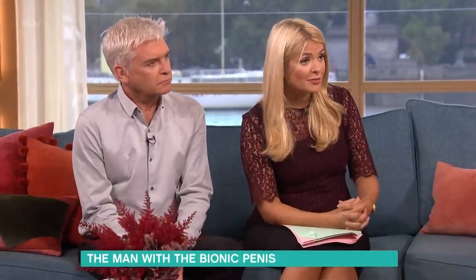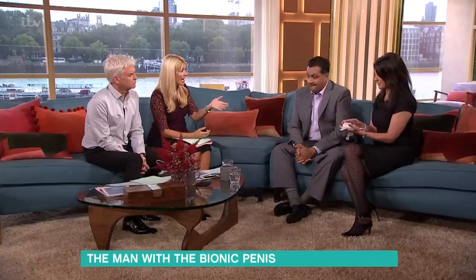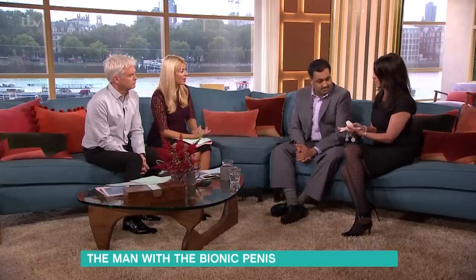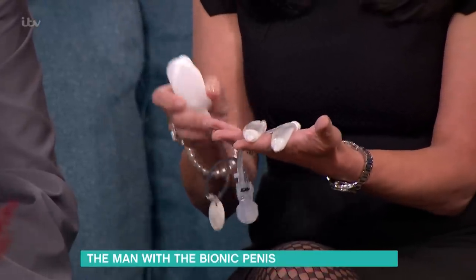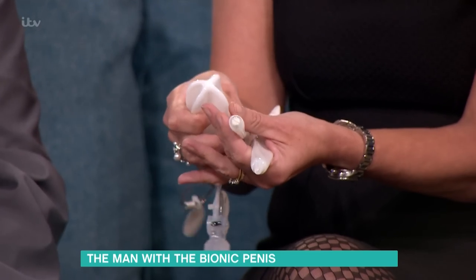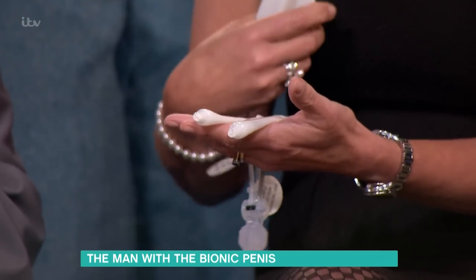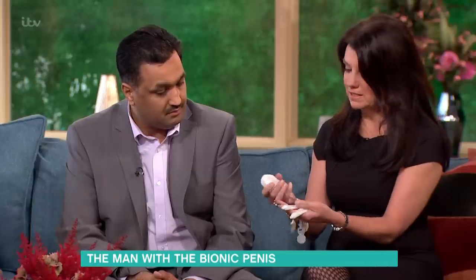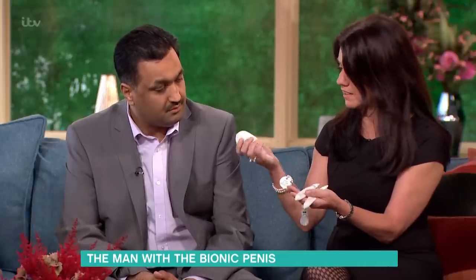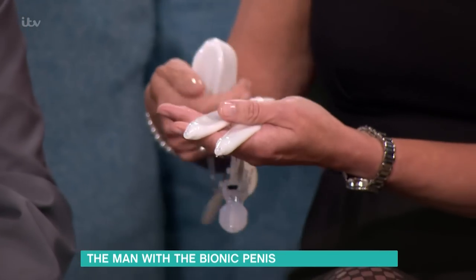This is incredible and ingenious. What you're holding in your hand is the reason how this is possible. It kind of mimics penile anatomy — these are like the spongy vascular chambers that you have in the penis. When you get aroused you get an influx of blood into the penis; in this case we've got saline in here.